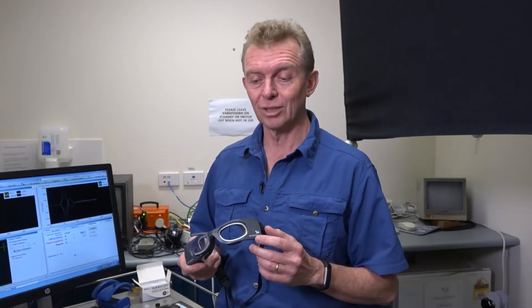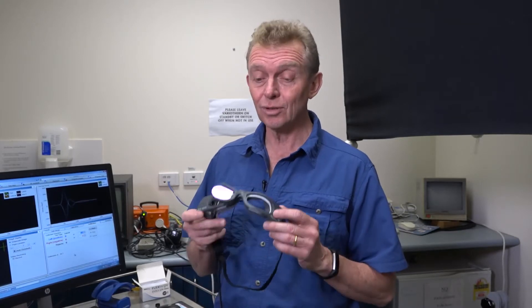G'day. I'd just like to introduce you to your V-HIT goggles. Every head movement in life is actually a three-dimensional thing, but what we're trying to do is measure two-dimensional responses. So it's very important that you actually know what your goggles are measuring.